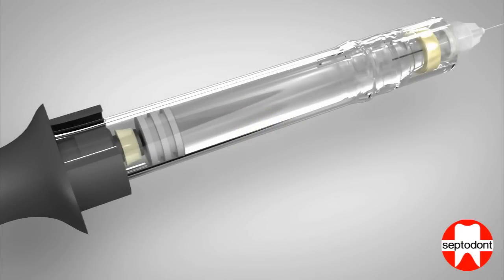The second form of aspiration can be obtained by the pliable O-ring situated at the end of the handle plunger. This O-ring creates a vacuum directly behind the cartridge piston when the plunger is slowly withdrawn.